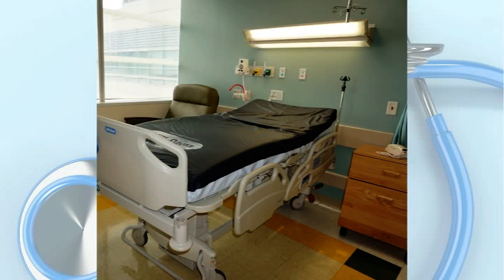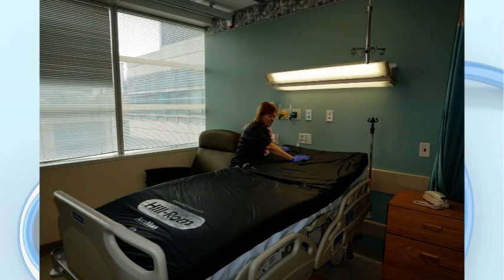Cleaning the patient bed. As an important step in cleaning and sanitizing all horizontal surfaces, special attention must be made in thoroughly cleaning and disinfecting the patient bed. You should have already stripped the bed of all sheets and linens. If you have not, perform this task before any bed cleaning starts. Now, with sheets removed, all surfaces of the bed must be cleaned and disinfected.